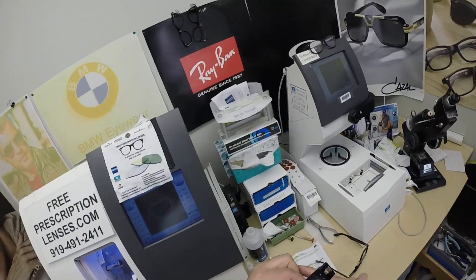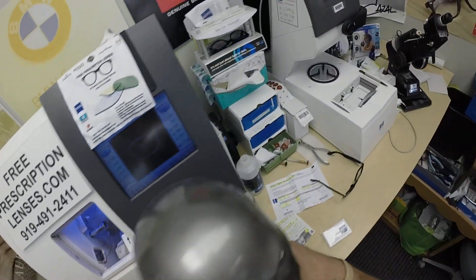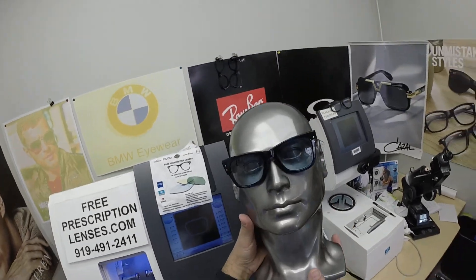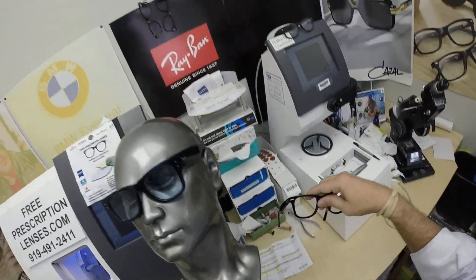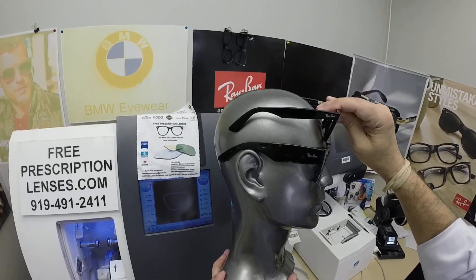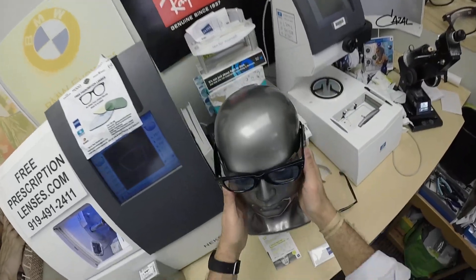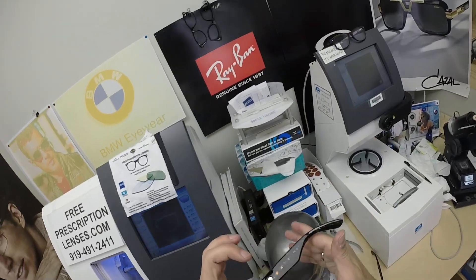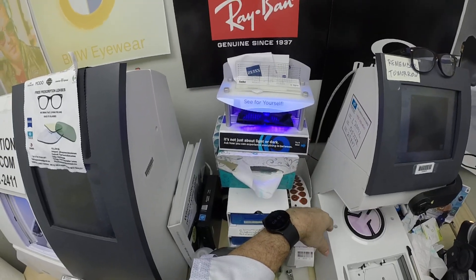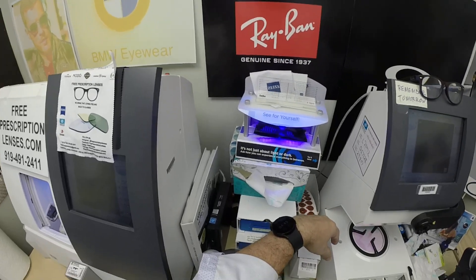He's got the photo fusion gray. Let me go ahead and darken these — excuse me for repeating myself because some people may be seeing this for the first time. That's the classic look. Now the original does not have the two dots on there, it has the diamond going sideways. You can see that much thicker temple that will block side light and other things. This is what they look like before they've been activated. You can get them with clear lenses or any color tint — red, yellow, orange, purple, green. It takes about 45 seconds to a minute for the lenses to darken, a little bit longer when you come back inside.